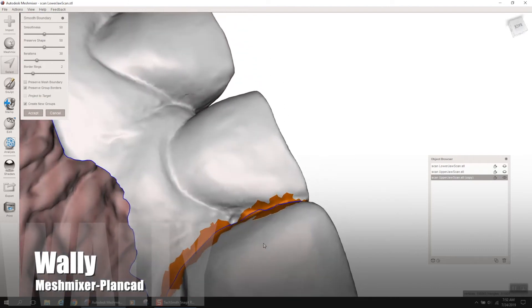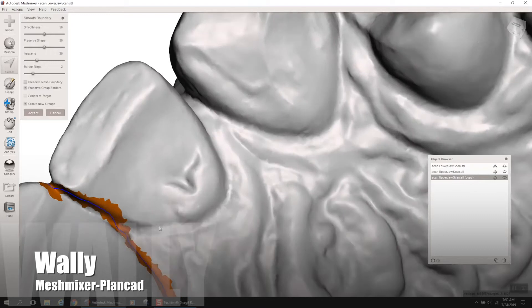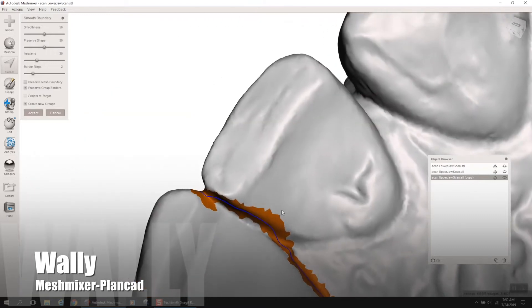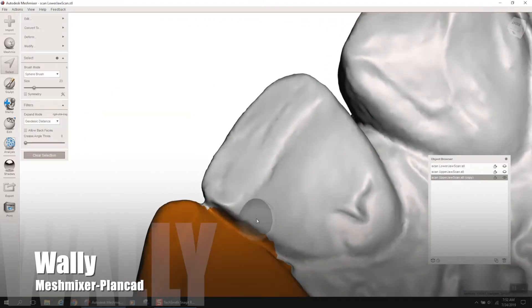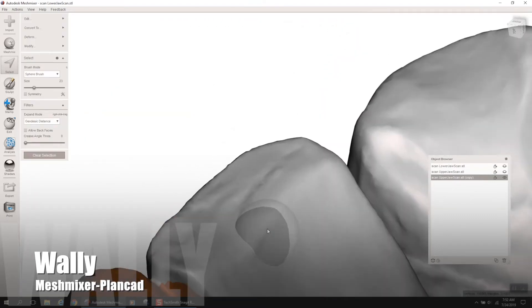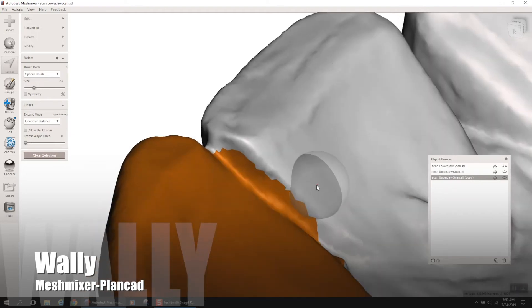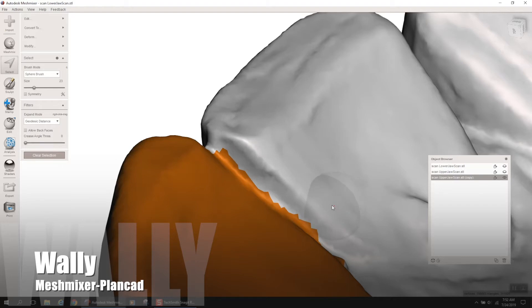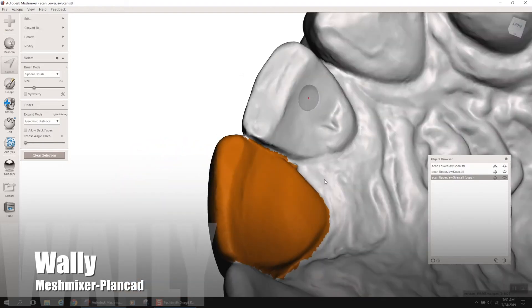For example, on the distal and proximal there on the lingual and interproximal space, I'm getting a little bit of that blue line over onto my adjacent tooth, which could potentially cause some issues with the delete, and when we delete the tooth, you might actually take some of that lateral incisor 10 with it, which would be bad.